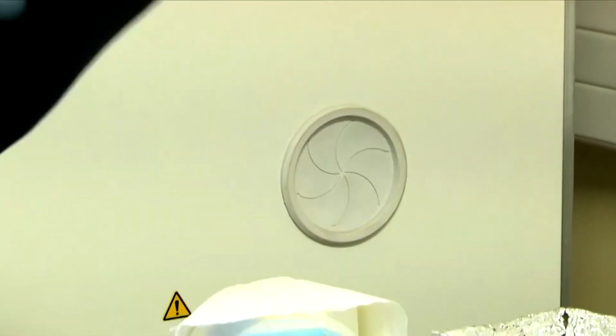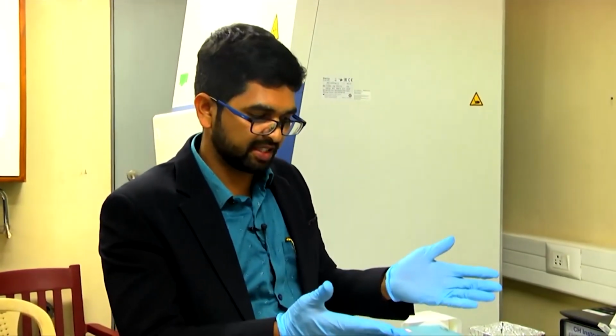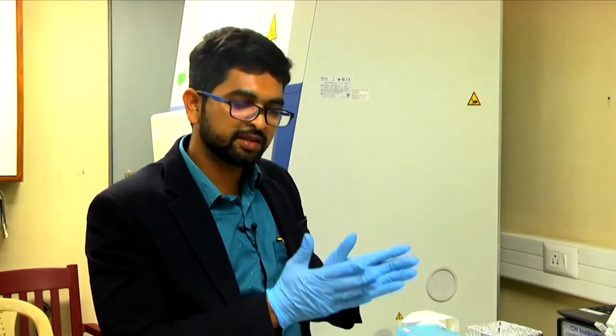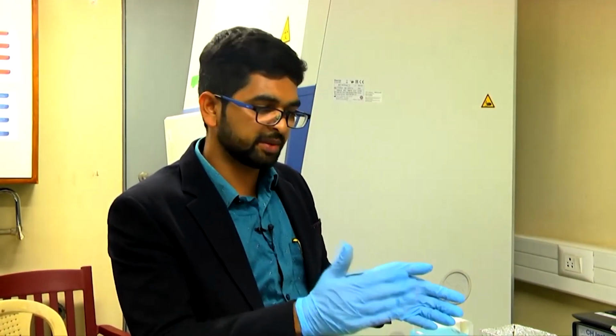Now let's again come to the very basic lab setup, where I will show you how to develop signal amplification. I taught you signal amplification strategies like electrochemical, chemical redox cycling for getting a high signal to background ratio. Why do we need a high signal to background ratio? To detect the disease at a very early stage. So let's see, for example, how electrochemical, chemical redox cycling works.